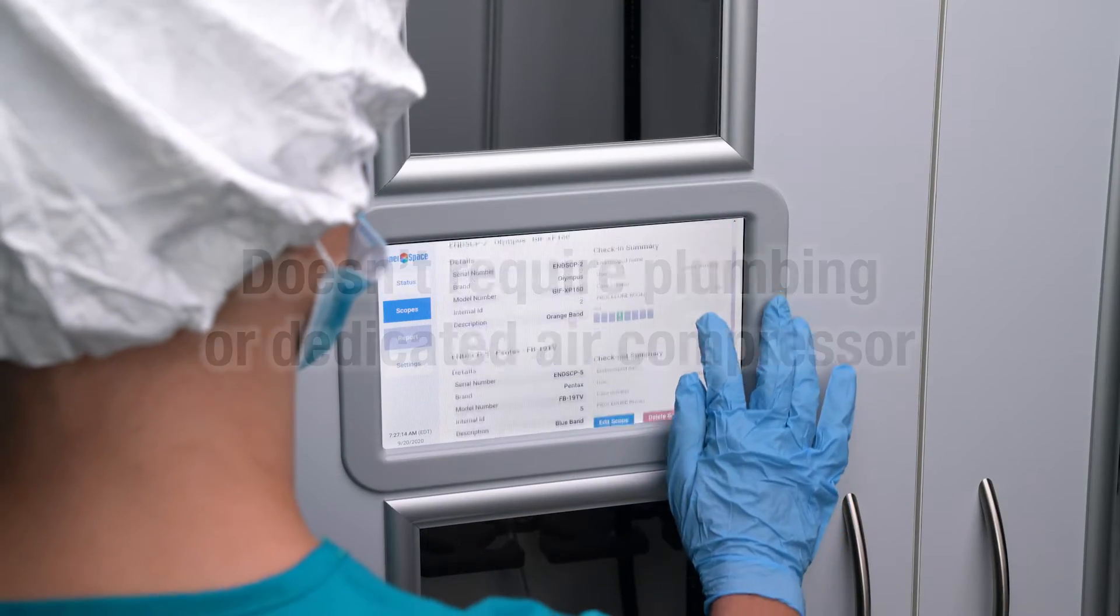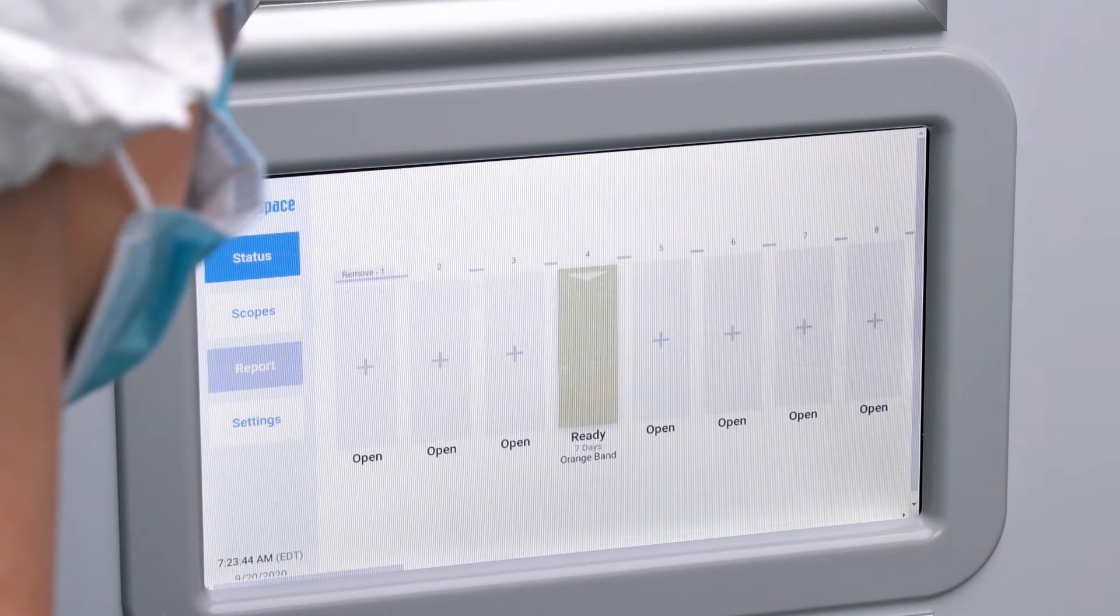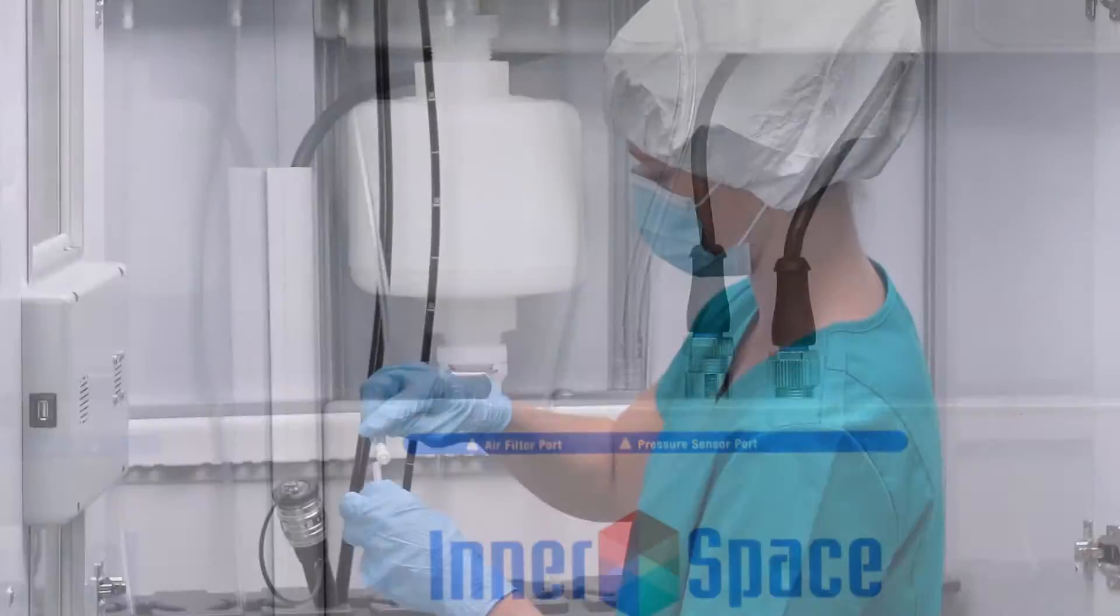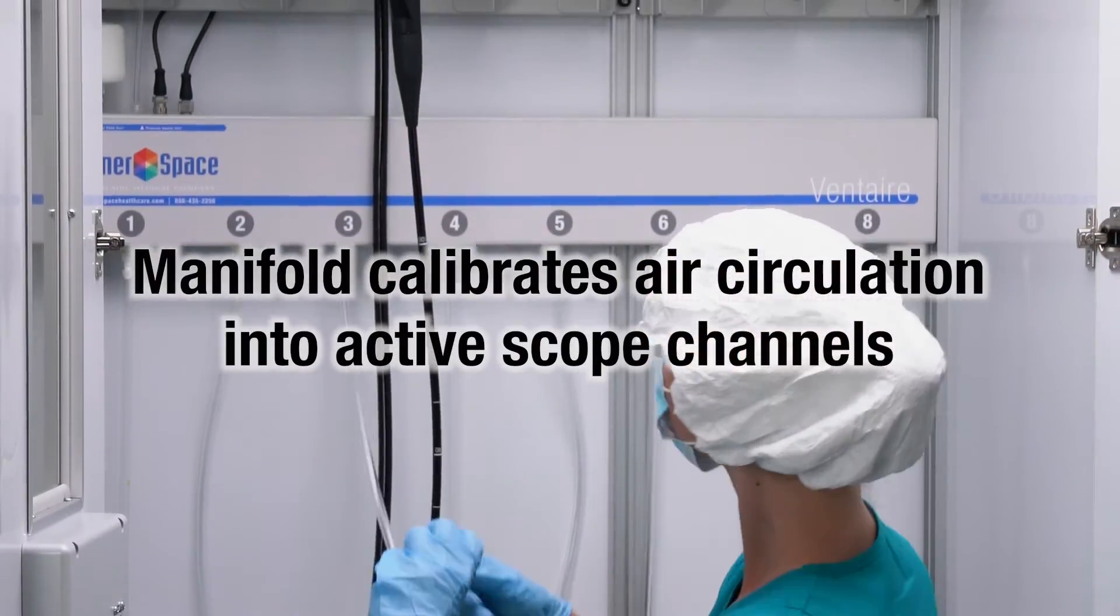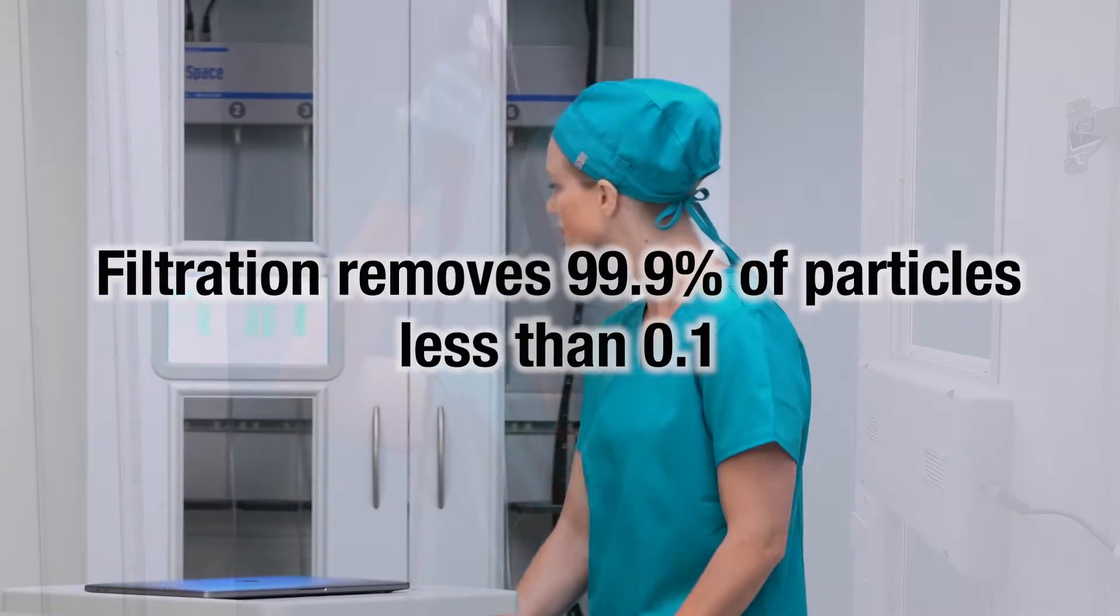The cabinet has an automated system that provides consistent, continuous delivery of HEPA-filtered, pressurized air into endoscope channels to keep scopes dry and vented. Its performance meets the 2021 Multi-Society Scope Storage and Drying Guidelines.